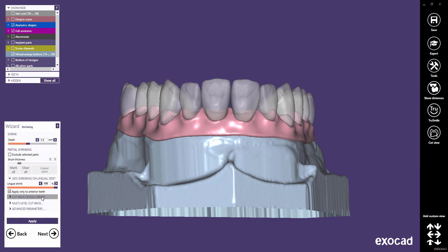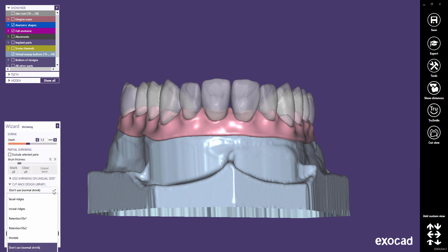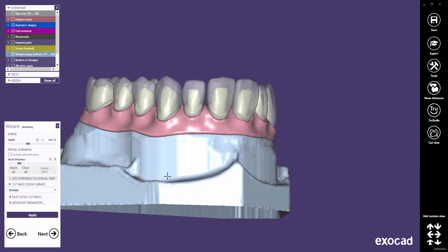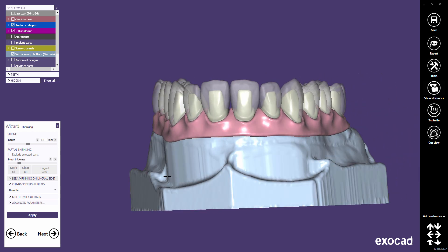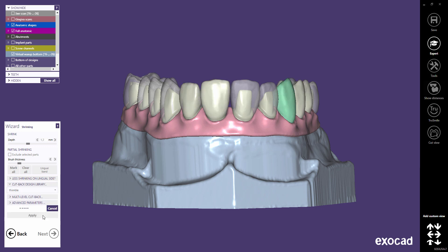In this important step, you can now select between different cutback libraries. Let's choose Thimble for the particular case in this tutorial. You will find more general information about all cutback libraries in a separate video tutorial. Click Apply when you have selected the desired library.